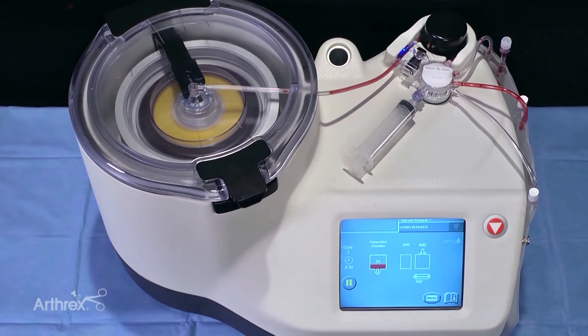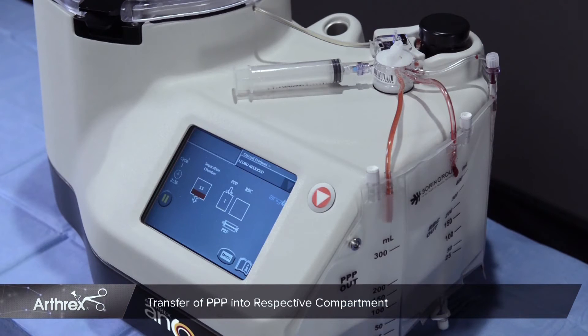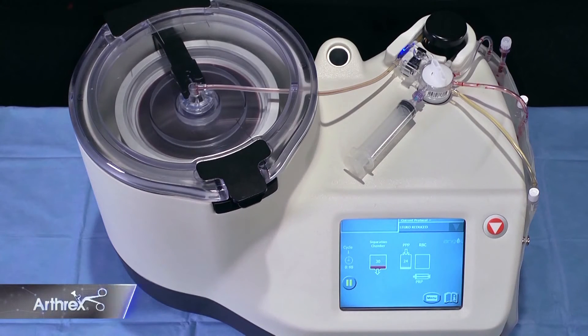The Angel system is the only device that allows the user to custom tailor PRP formulation. Platelet concentration, white blood cell content, and volume are all adjustable. Revolutionary flexibility with one-button automation.